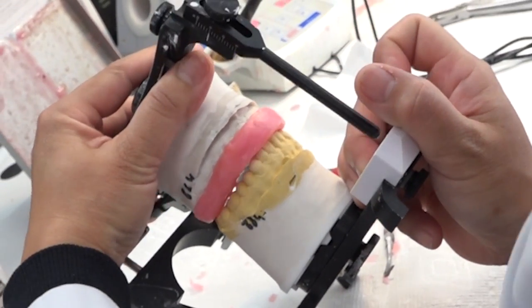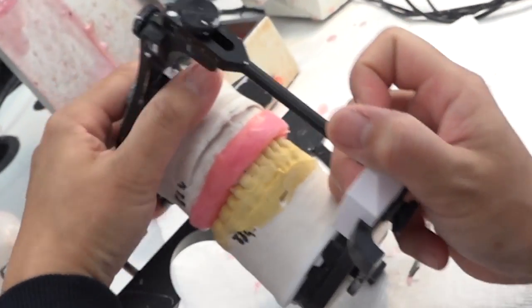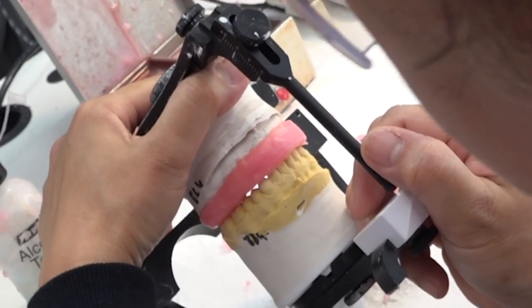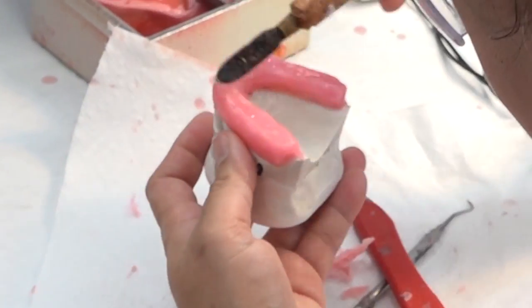Check for canine rise or anterior guidance depending on the prescription. Make sure to smooth out indentations.